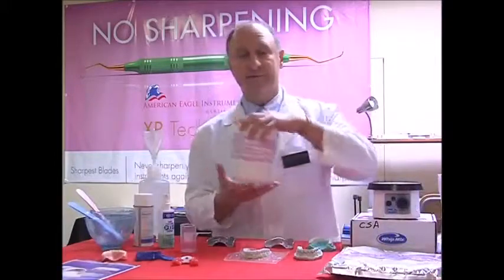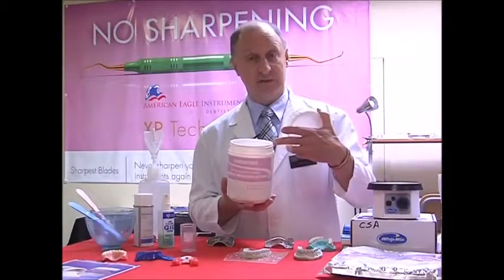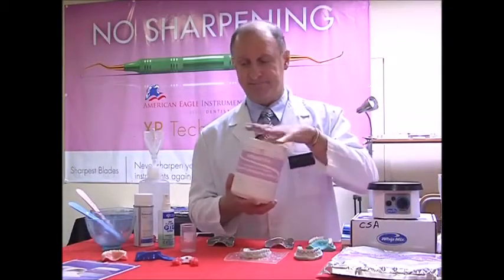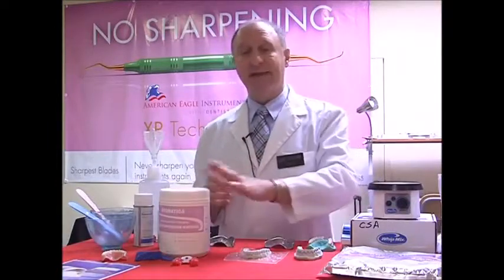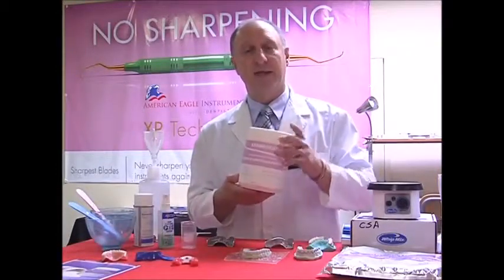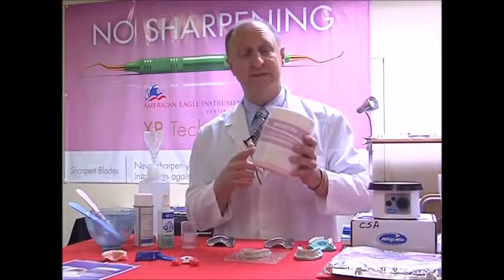The problem being that as soon as we put it into a container, a canister like this, as soon as moisture gets inside, it can contaminate or change the flow properties of the material. So we want to keep the lid on pretty much at all times. Handling the material. The alginate itself will settle since it's made from 3 different particle sizes, and it does need to be fluffed up. The incorrect way of fluffing an alginate is by doing this or by doing this to the material. It hurts the material that's inside.